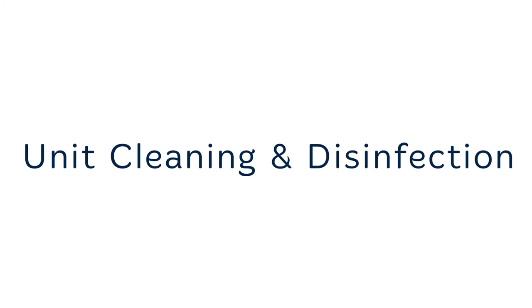Now we will discuss the two types of cleaning you'll need to be familiar with for your system: chemical cleaning and heat disinfection. Regular chemical cleaning and heat disinfection of the unit are recommended to remove minerals and bacteria that may have built up on the membrane.